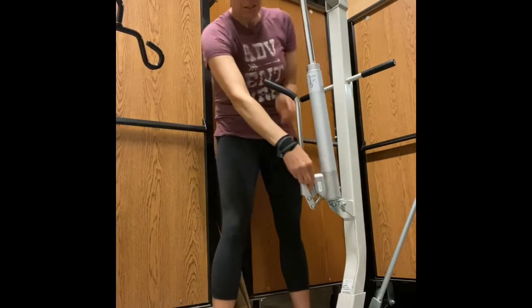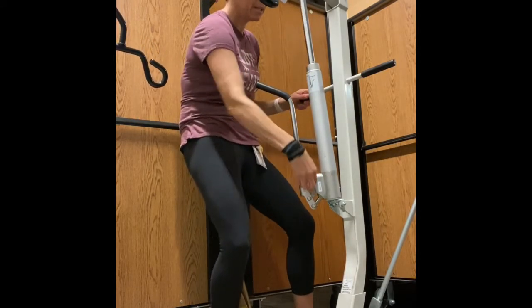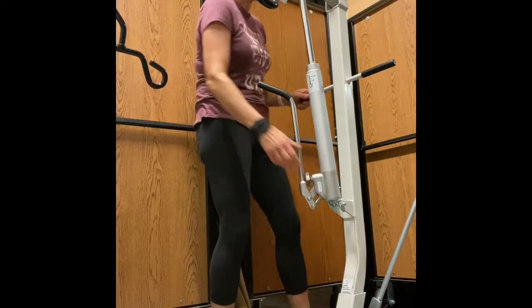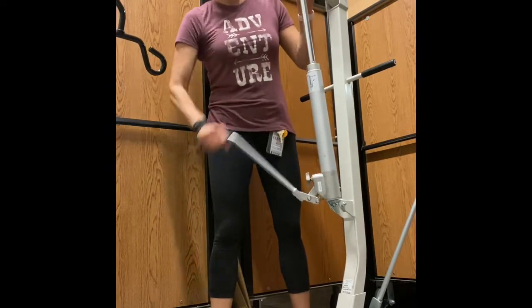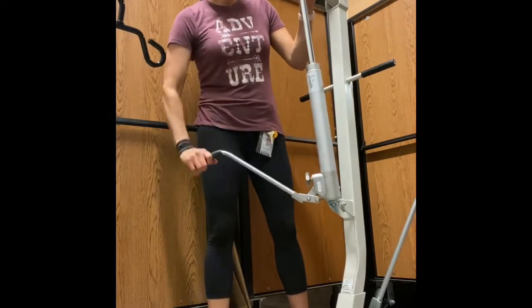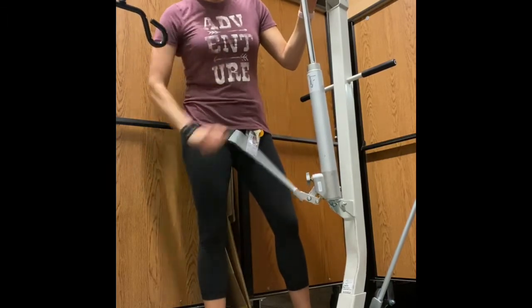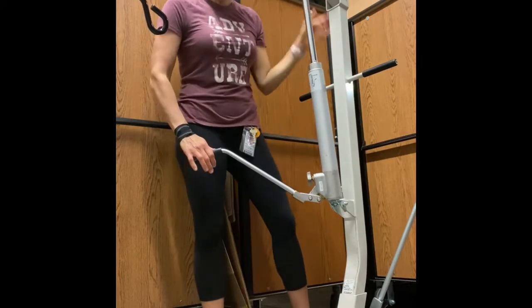Lefty-loosey to lower. In order to lower we turn it to the left, but let's start with raising it. I want to make sure it's locked totally to the right to raise. Right to raise — and I'm bringing it up. We can see this Hoyer is not working super well; it is a little bit labor intensive on a child or patient that is heavier.